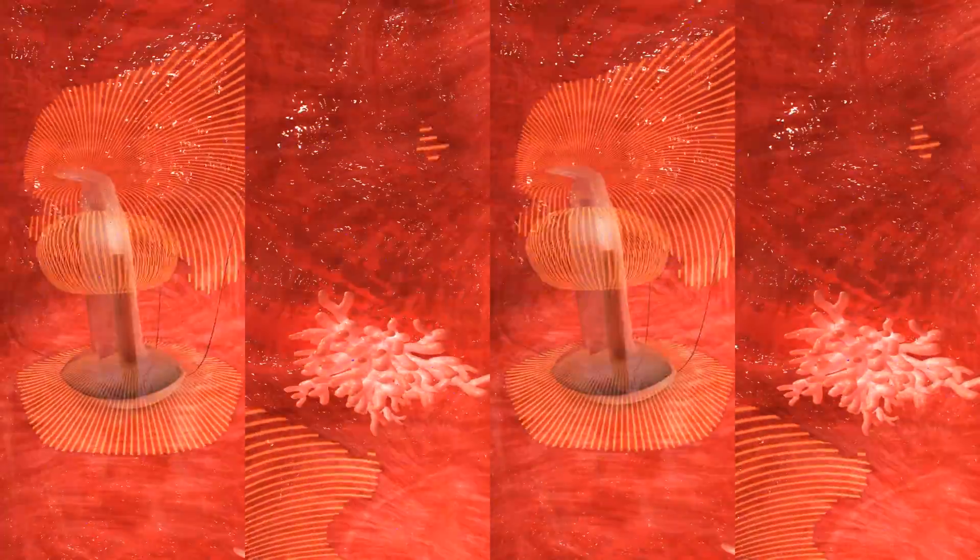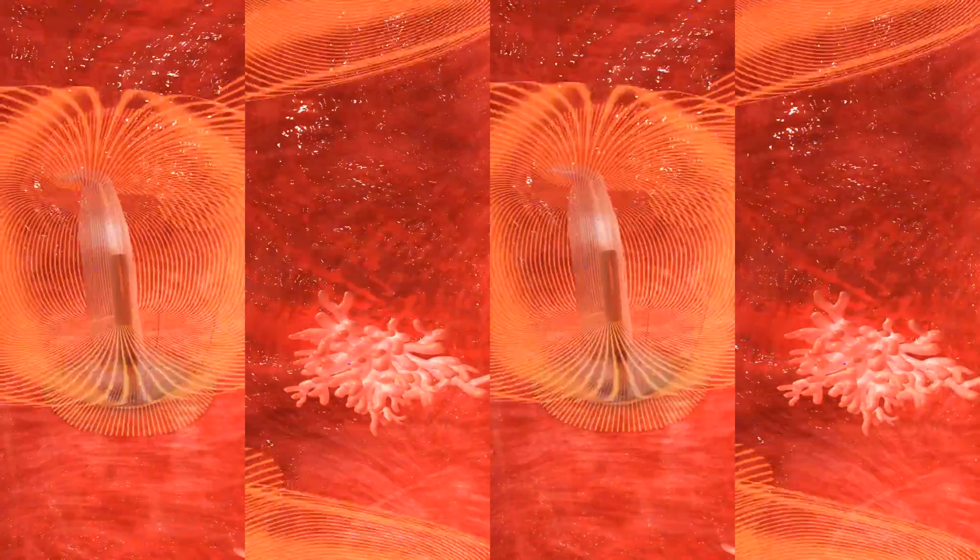Gone unfelt, three thermocouples are gently deployed onto the bladder walls in predefined locations. They enable monitoring and adjusting of settings in real time. You might have noticed two more thermocouples in the catheter. Those monitor the urethral temperatures.